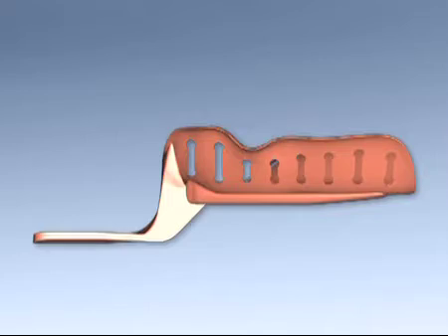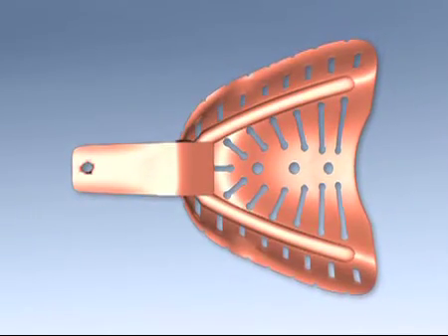The posterior of the tray is contoured to allow for the precise capturing of the functional hard soft palate throat form.